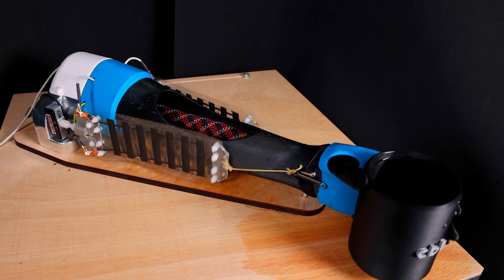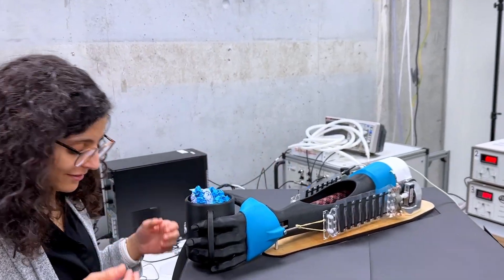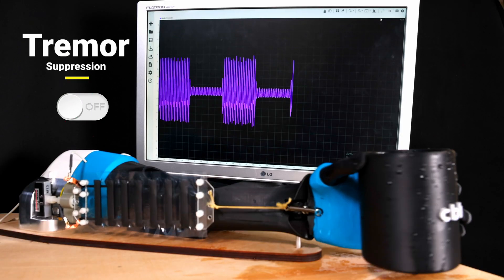The vision is to one day develop a sleeve that tremor patients can comfortably wear to be able to better cope with everyday tasks, such as holding a cup without spilling anything.